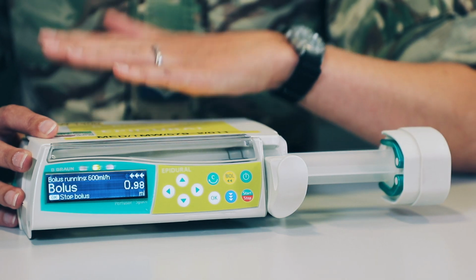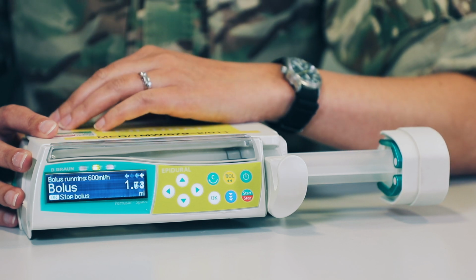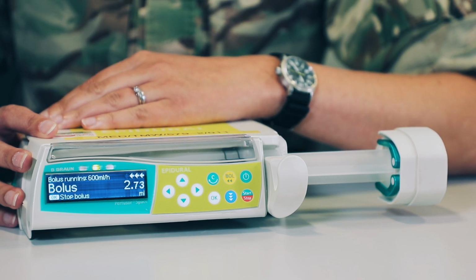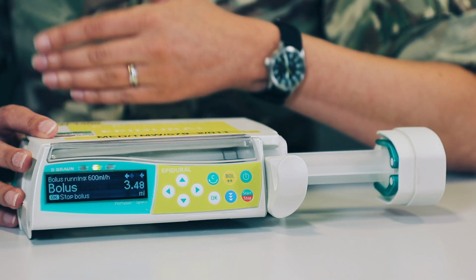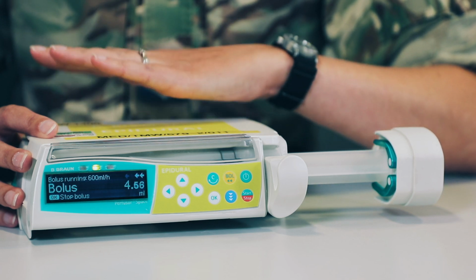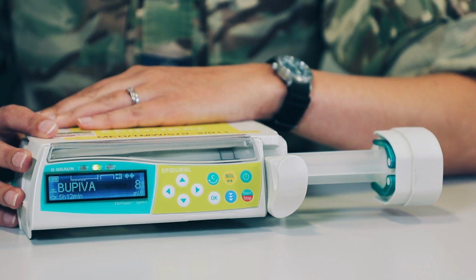What we need to remember as the safety feature for this is that boluses should only be administered by a member of the medical team. And also, if you're using particularly the manual bolus function, there's nothing to prevent you from giving repeated boluses. So there's no safety feature within this to prevent that repeated bolus administration. So people just need to be aware that although there are safety features in the epidural, it's not perfect.